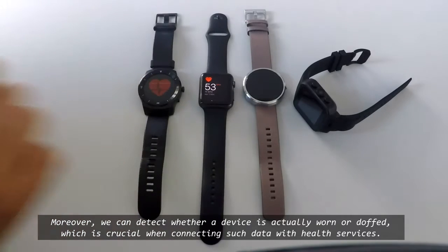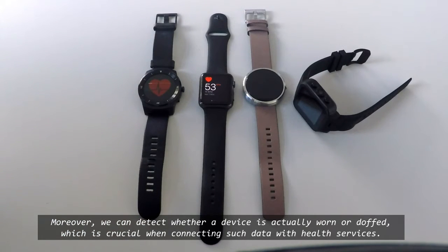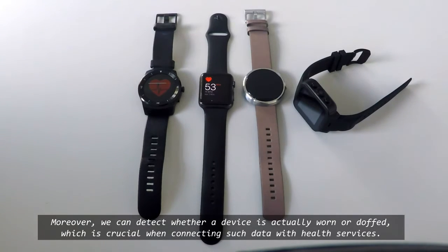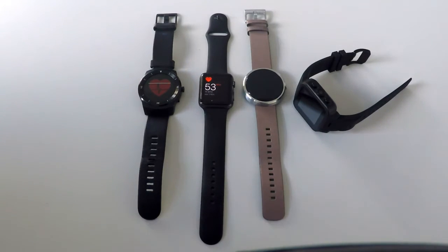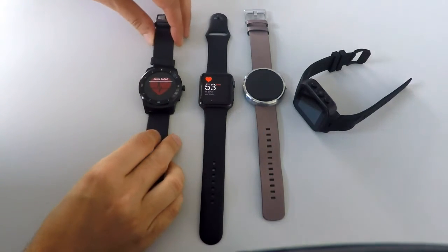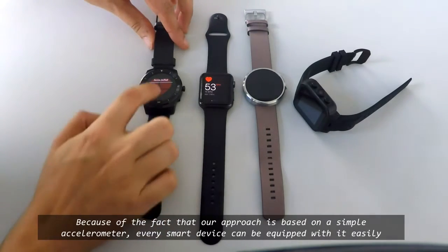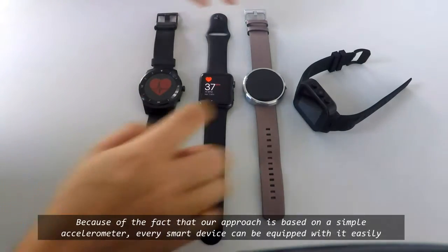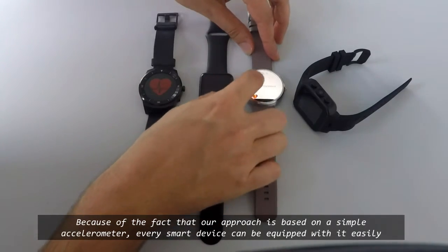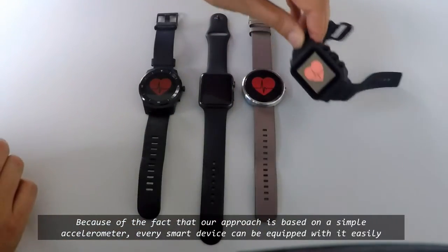Moreover, we can detect whether a device is actually worn or doffed, which is crucial when connecting such data with health services. Because our approach is based on a simple accelerometer, every smart device can be equipped with it easily.